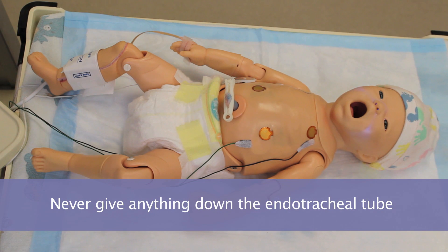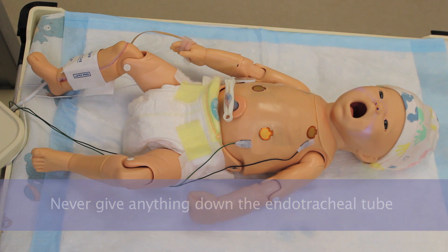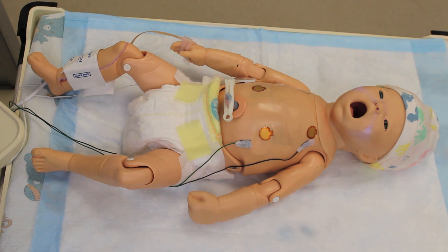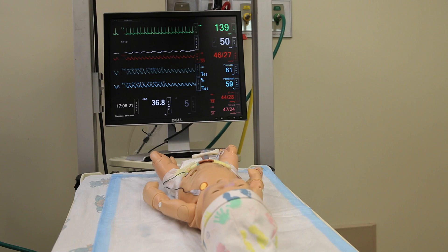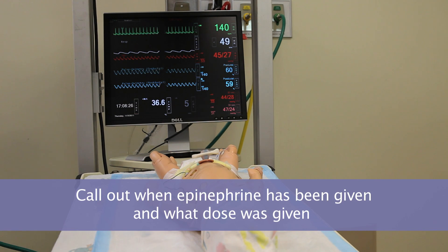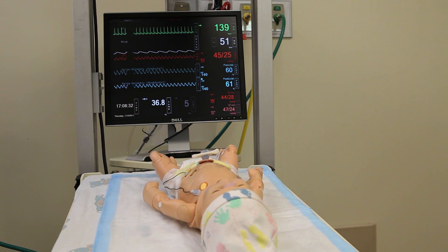Never give anything down the endotracheal tube. If you need to give epinephrine via the endotracheal tube, drop the medication, call out the correct dose, and instead of instilling it in the ET tube, just discard it in the trash can or into the bed. It's important that you call out that epinephrine has been given and what dose so that the facilitator can take action to either improve the baby or not.